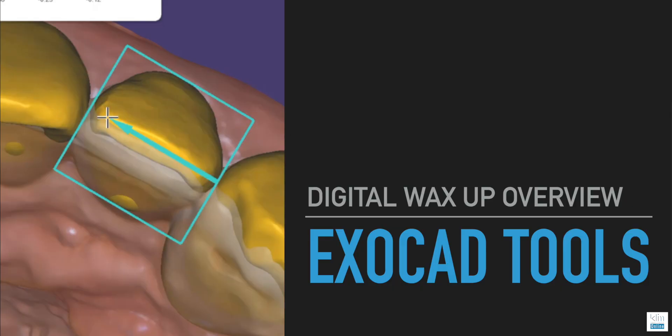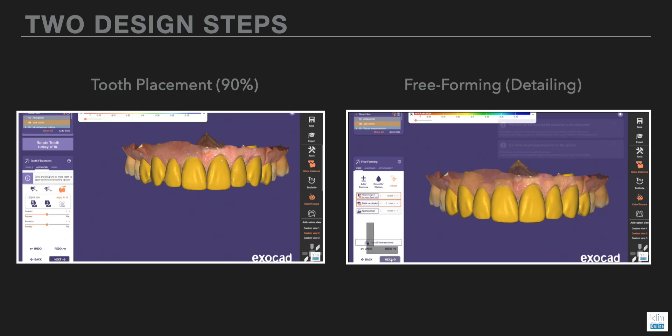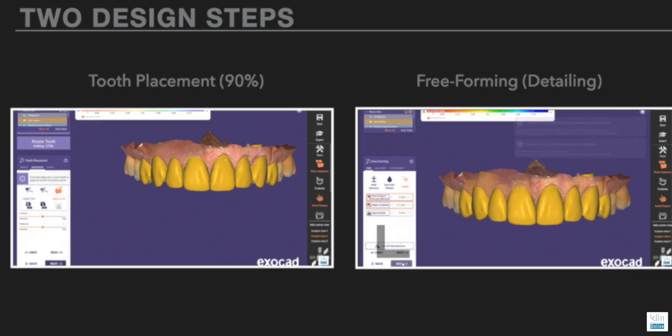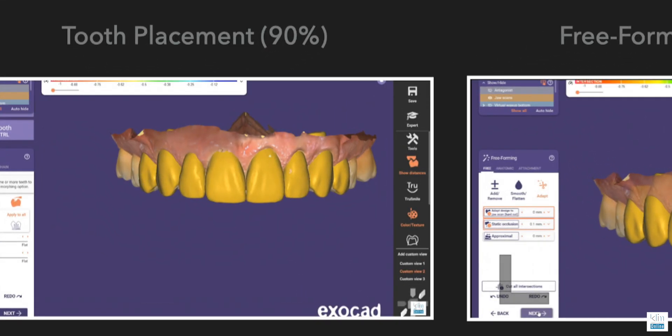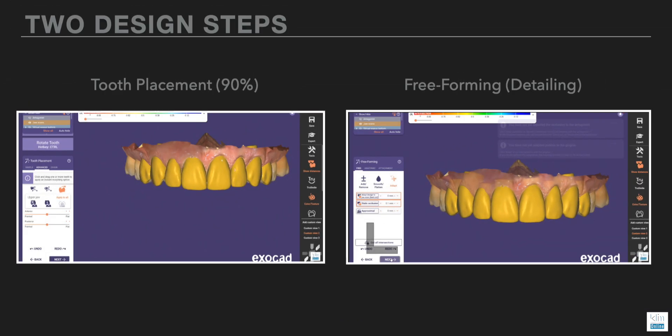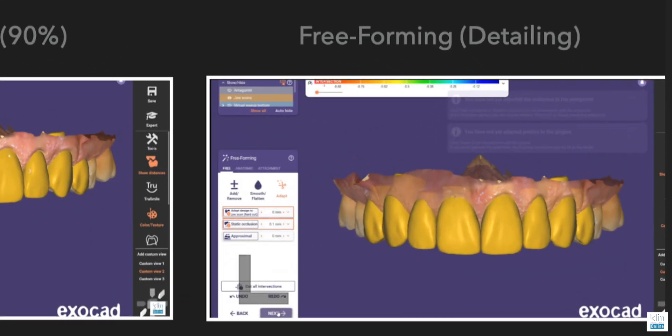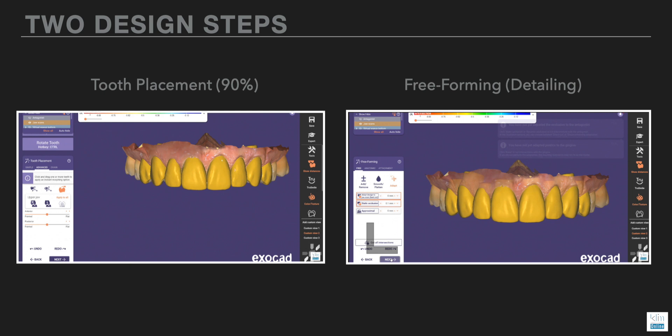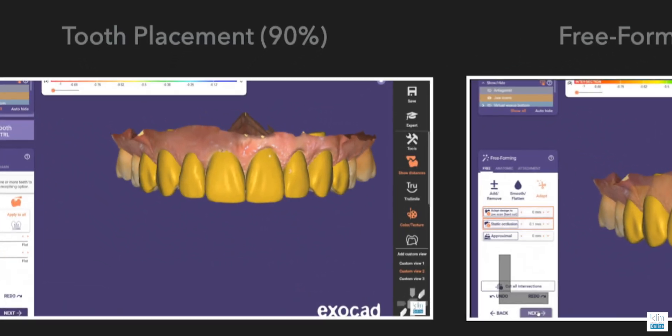This video is going to introduce how I use certain tools that are comparable to the tools in CEREC — in fact, a little better — for doing the digital wax-up as I move through that workflow. The wizard in Exocad is very similar to the steps you would use in InLab. We have a tooth placement step, and then we have another window of design — the refinement of where that restoration is locked onto the model. In Exocad, they call that tooth placement, and that's where we're going to design about 90% of our work.